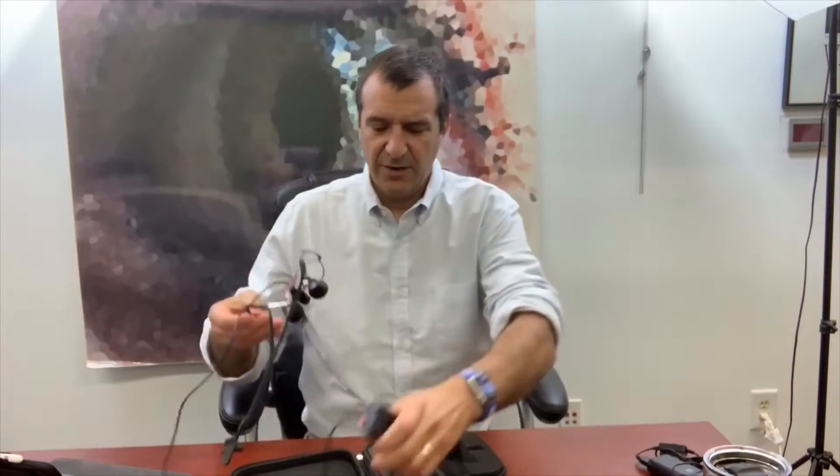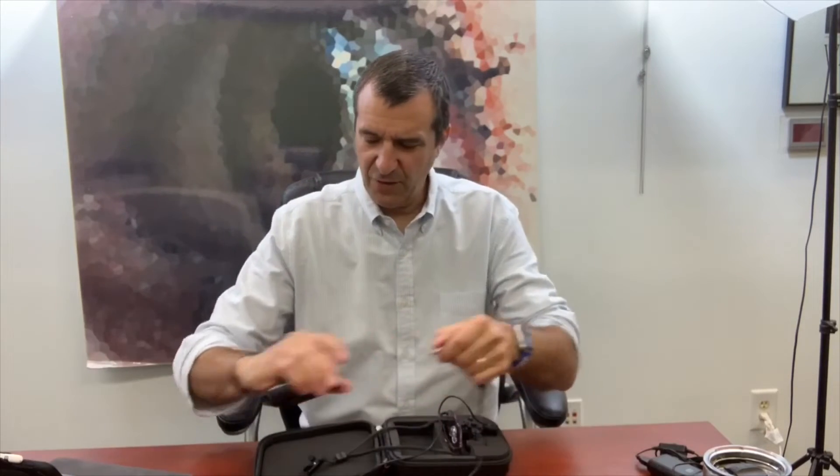When you're done, hang it around your neck and you're all set. When you're done wearing your Craft Optics and want to put them away for the night, just take them off over your head, put the whole thing in the case, set it in like this, unplug the wire, put it all in the case, and shut it.